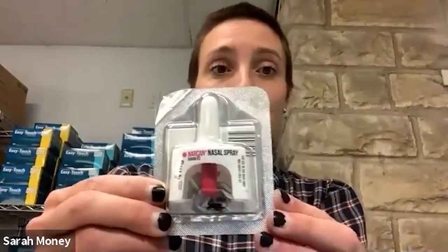Naloxone can be a little scary, but it's super easy to administer. So first, I'm going to talk about Narcan in the nasal atomizer. You can pick up Narcan from most pharmacies. In Colorado, pharmacists are allowed to both write and fill a Narcan prescription. I know this for a fact because I got this from a pharmacy here in town yesterday. It's super easy to use.